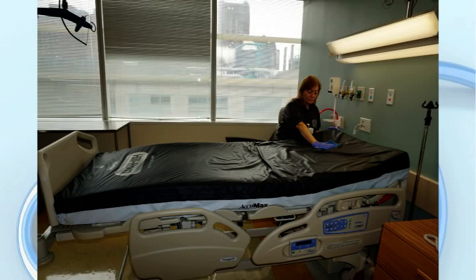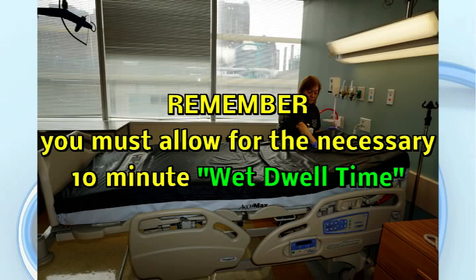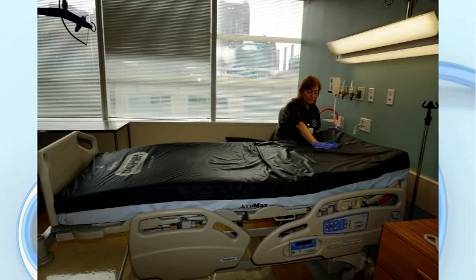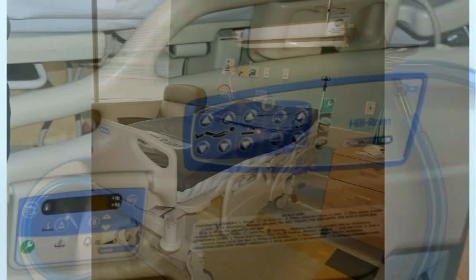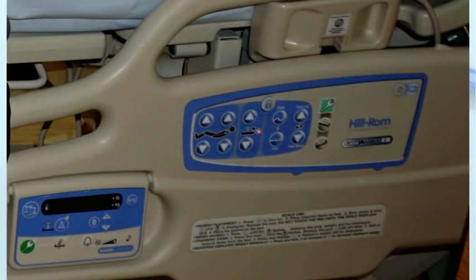In all cleaning of the bed, allow the required 10-minute wet dwell time for the neutral disinfectant cleaner to eradicate all microorganisms. Once all surfaces have been cleaned, return the bed to the lower, fully flat position. As your last step, clean the push button controller that you have been using to raise and lower the bed.